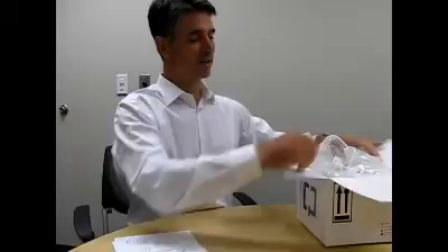This is how we see colon cancer screening can be. When you go to your doctor, the doctor orders a Cologuard test. That automatically triggers UPS sending a collection kit to your home. You open up the collection kit once you receive it.